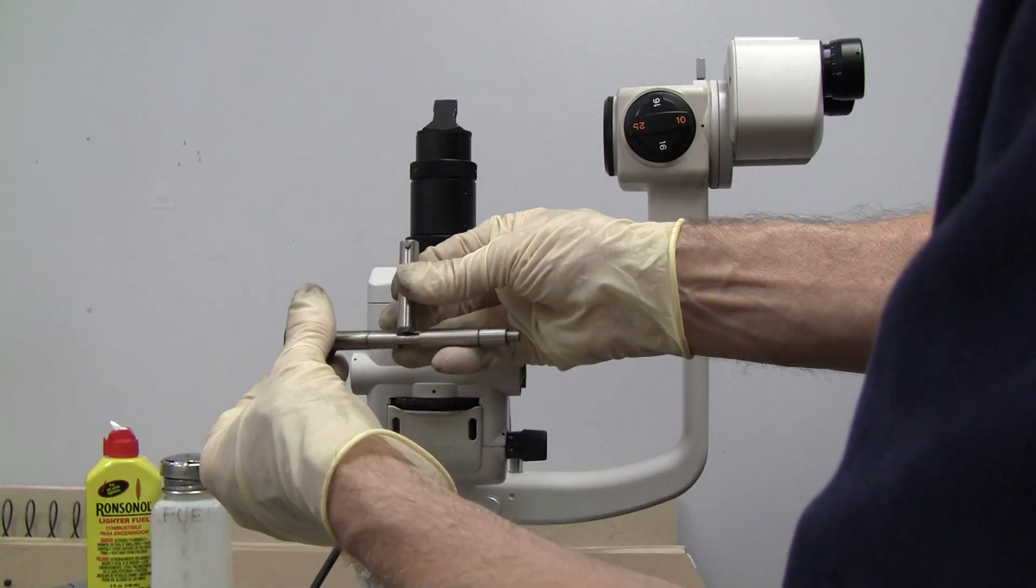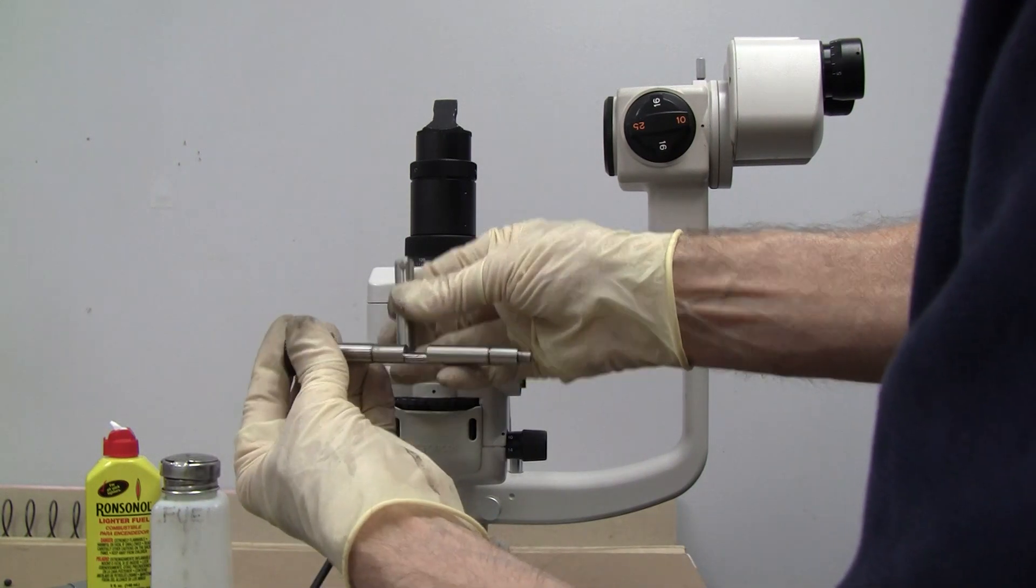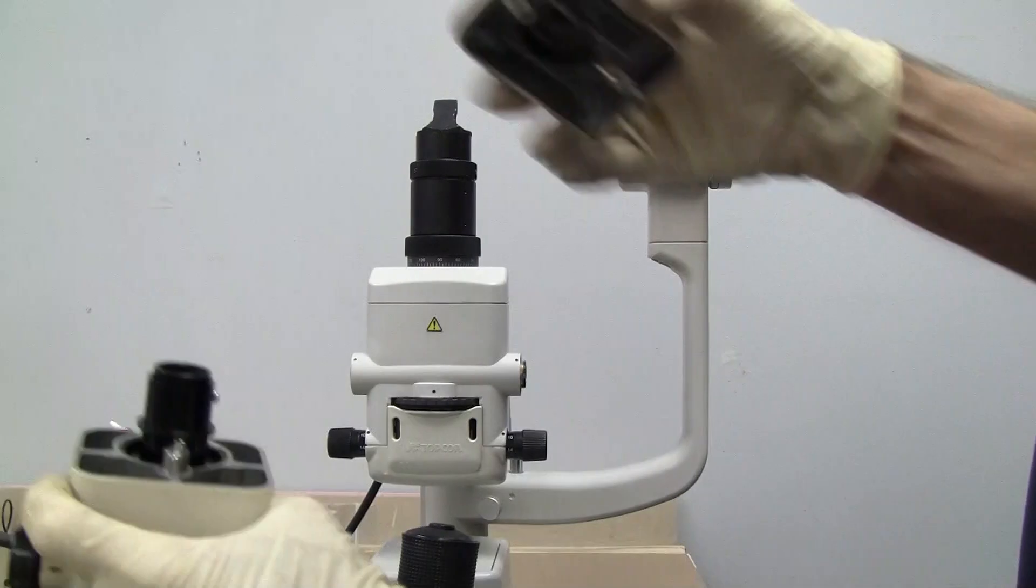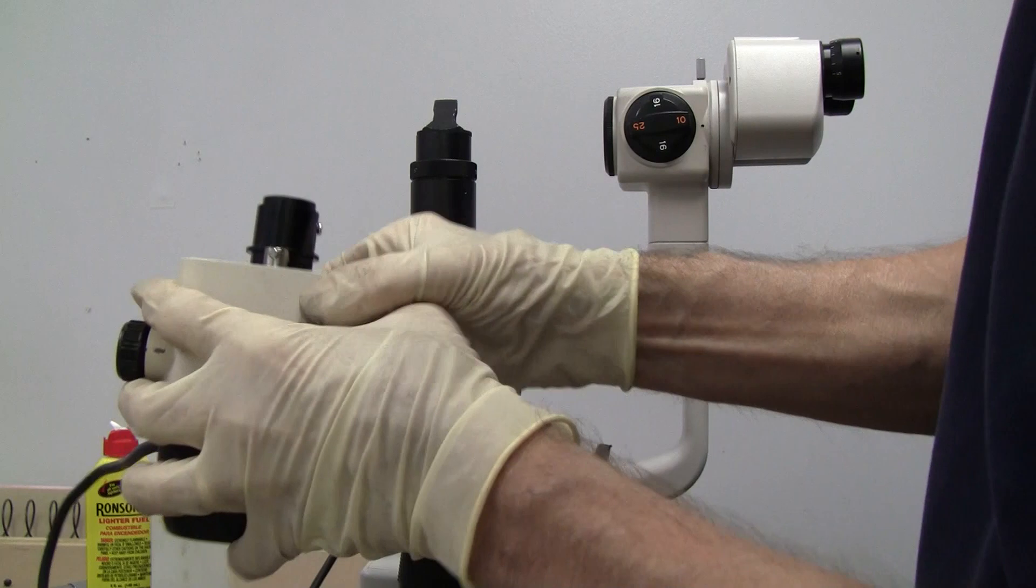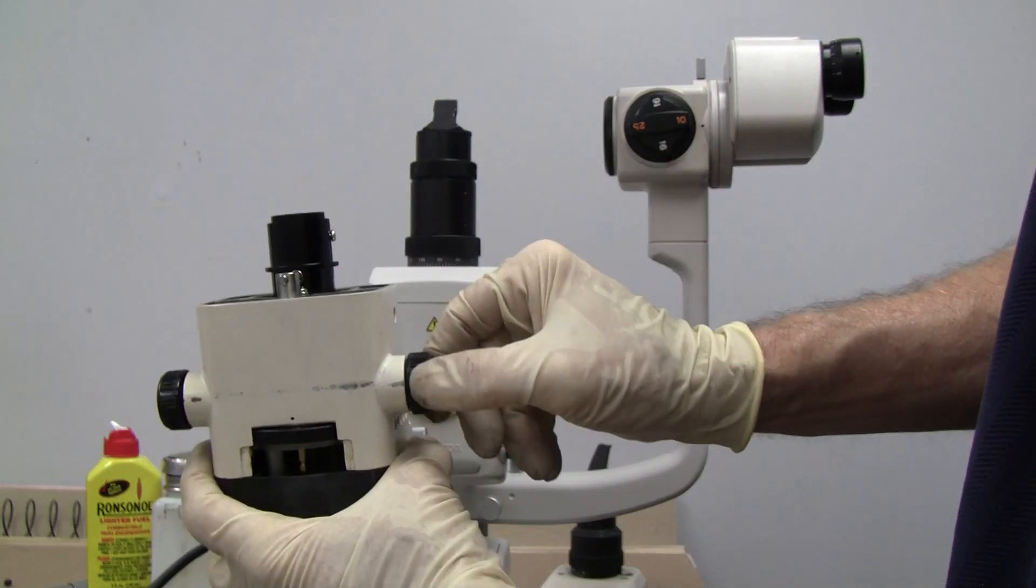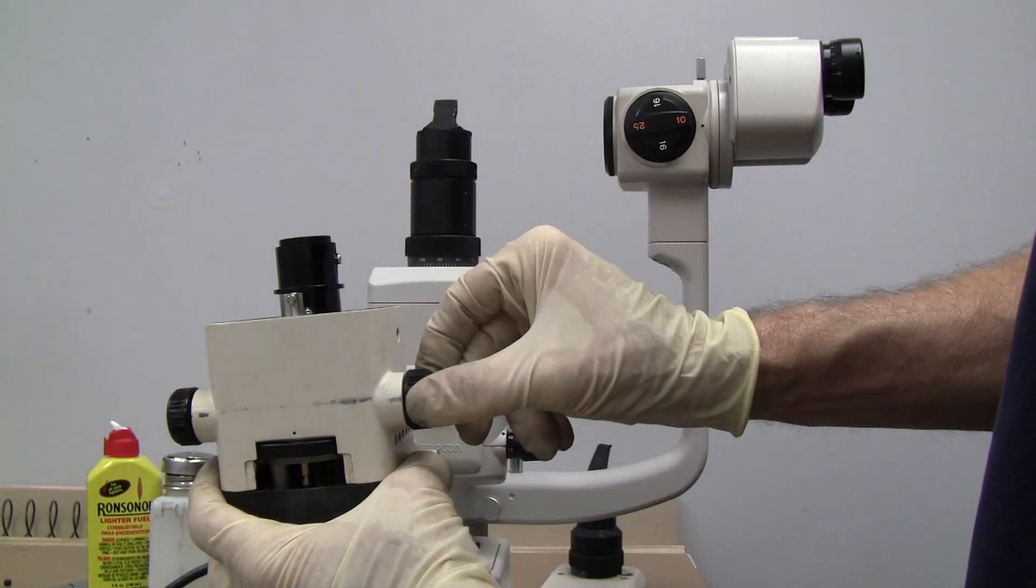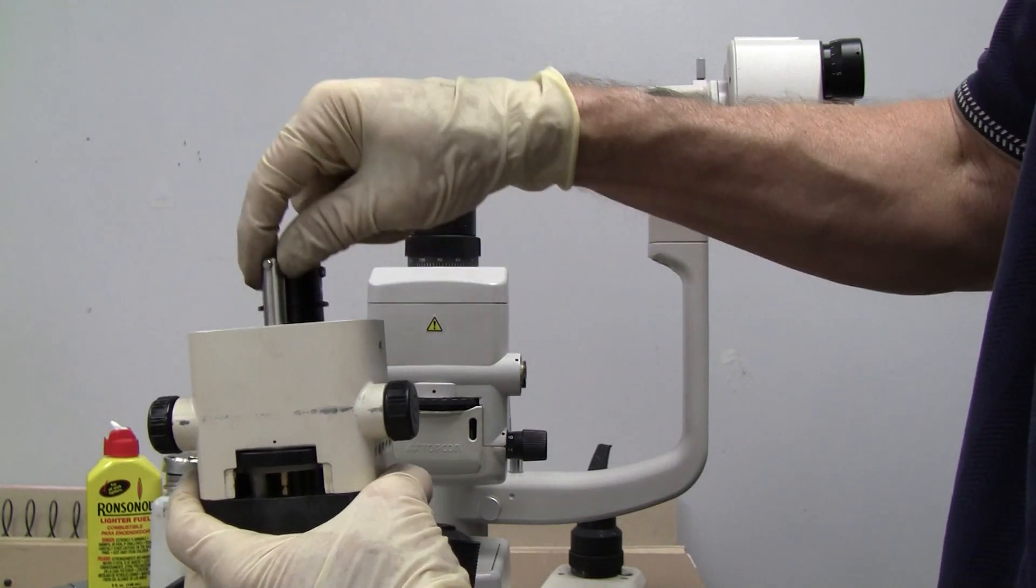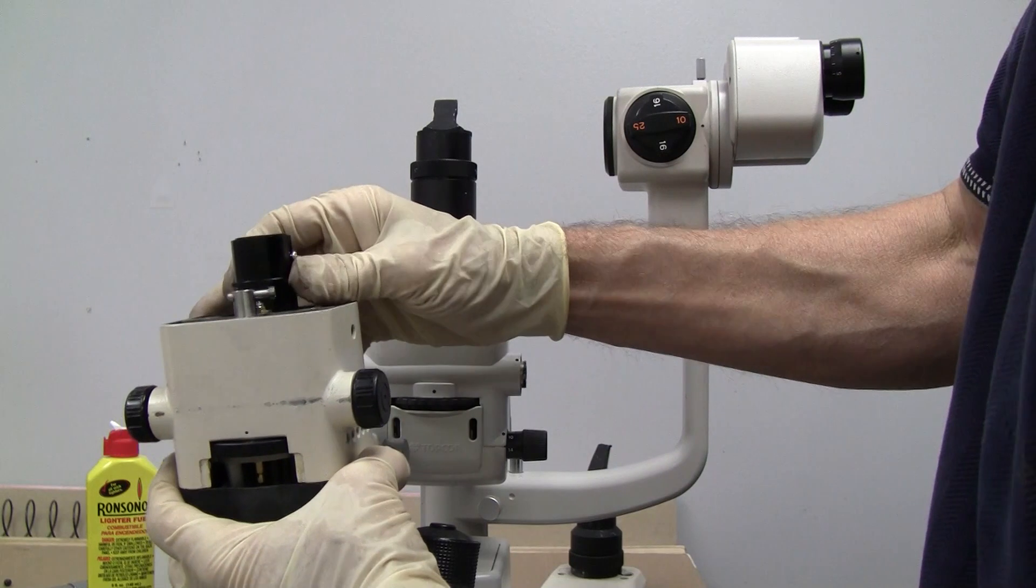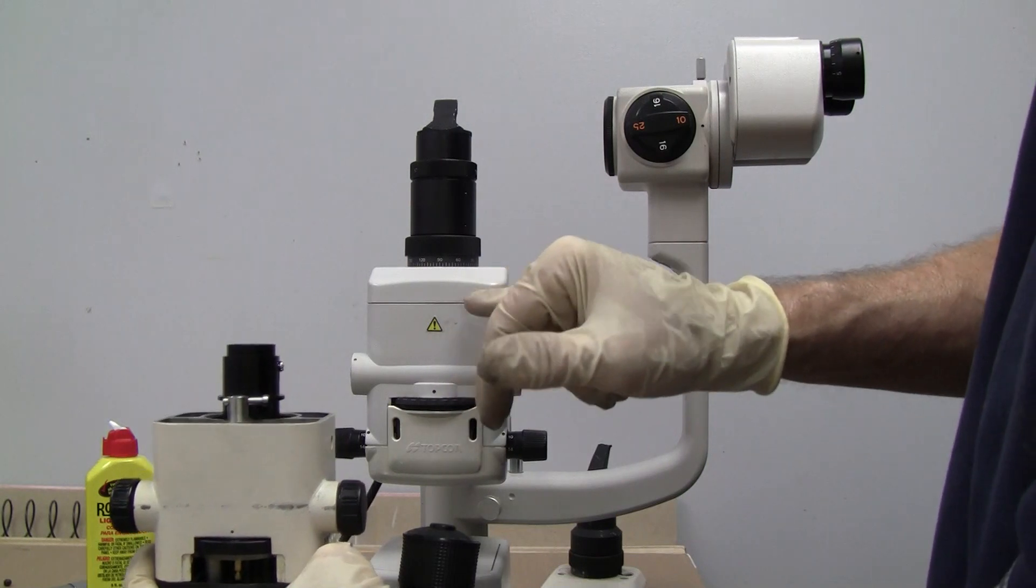And what that operates is a little piston here. It's inside here. And this cam pushes this piston up and down. And it's similar to this setup, where this piston, as I'm turning it, pushes this up and down, which raises and lowers the slits.